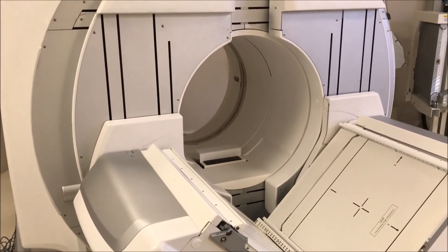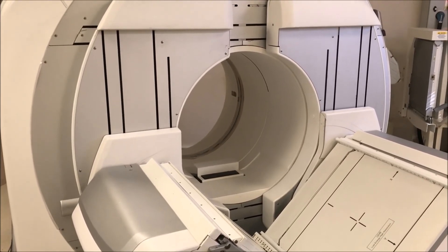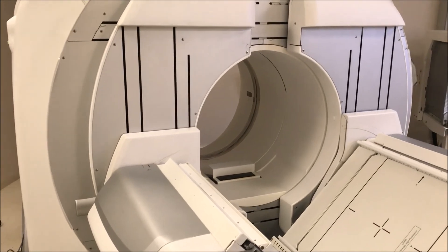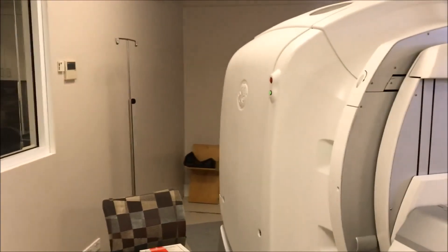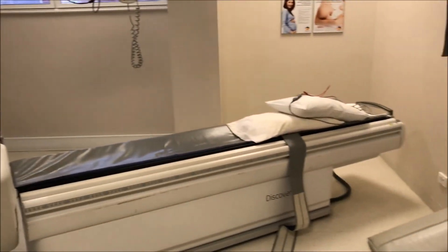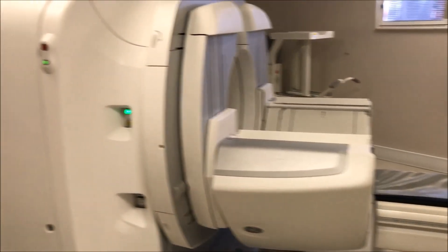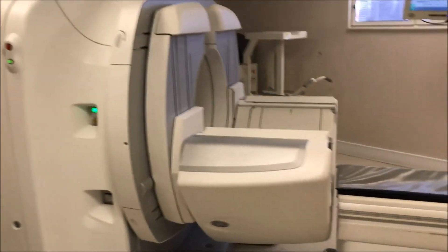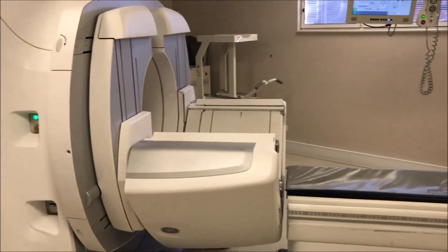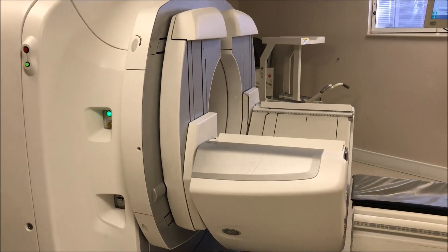The rest of this GE Discovery is high-resolution multi-slice CT. Gamma cameras typically come with 8, 16, 32, 64, up to 128-slice CT — that's the ring you can see inside the gantry. As a result, it's quite a big system. It's fitted diagonally in this room because the bed has to go through not just the gamma camera but also the CT scanner out the other side, so it needs quite a bit of space. That's the latest generation of SPECT systems — full SPECT with diagnostic CT.